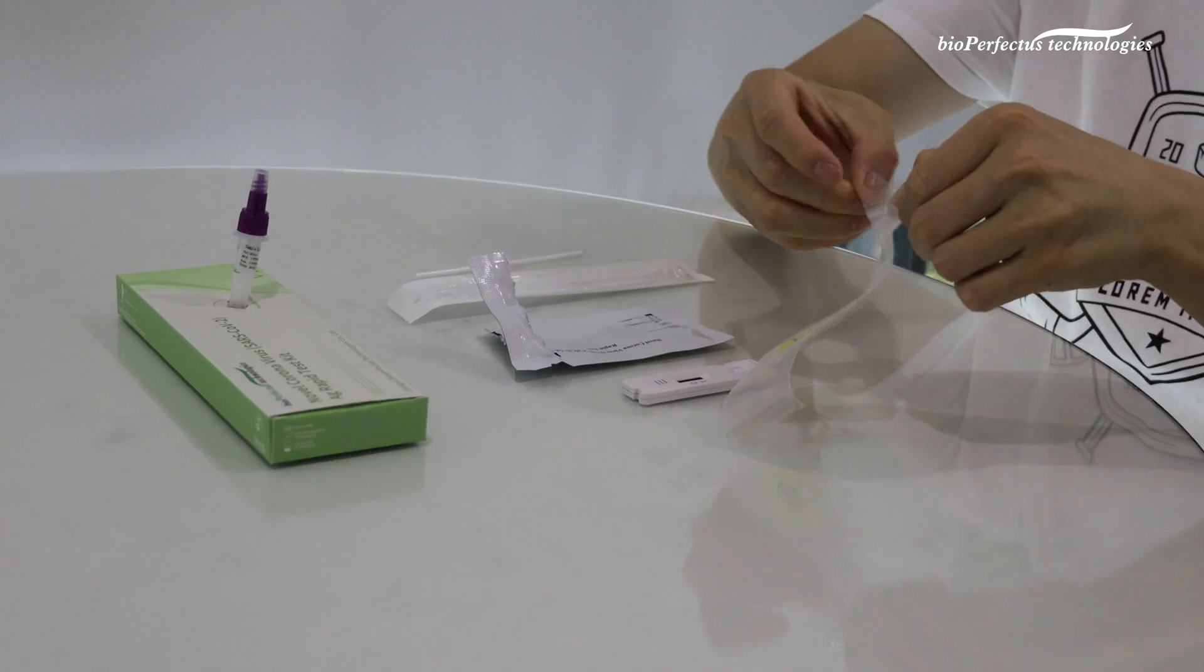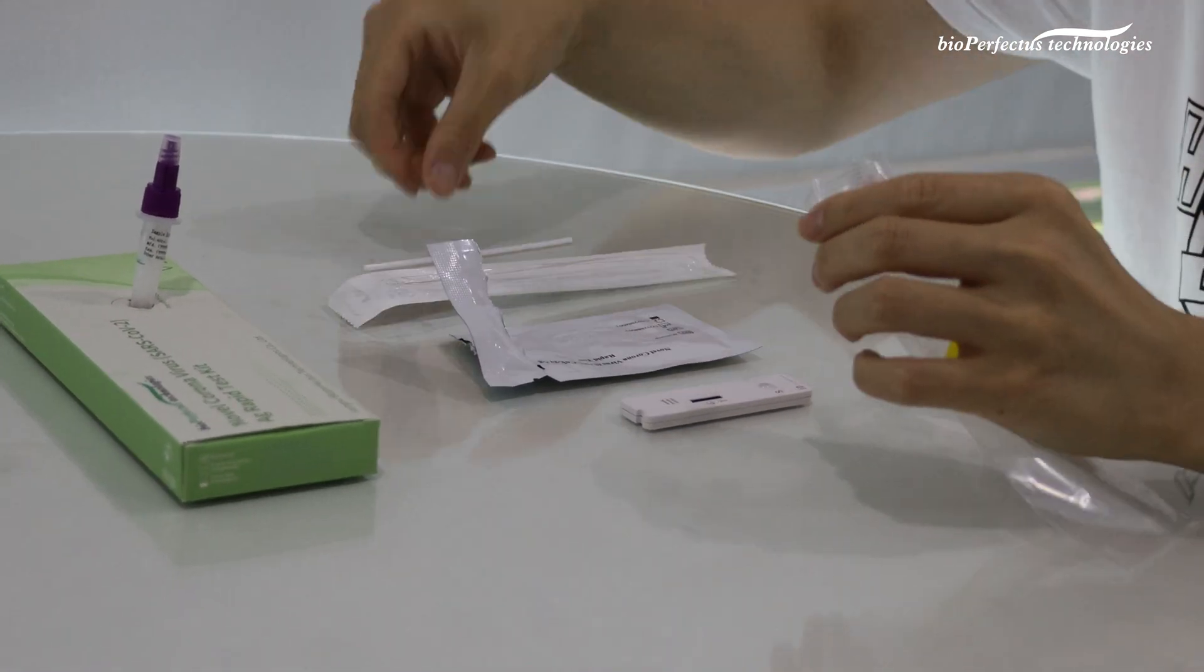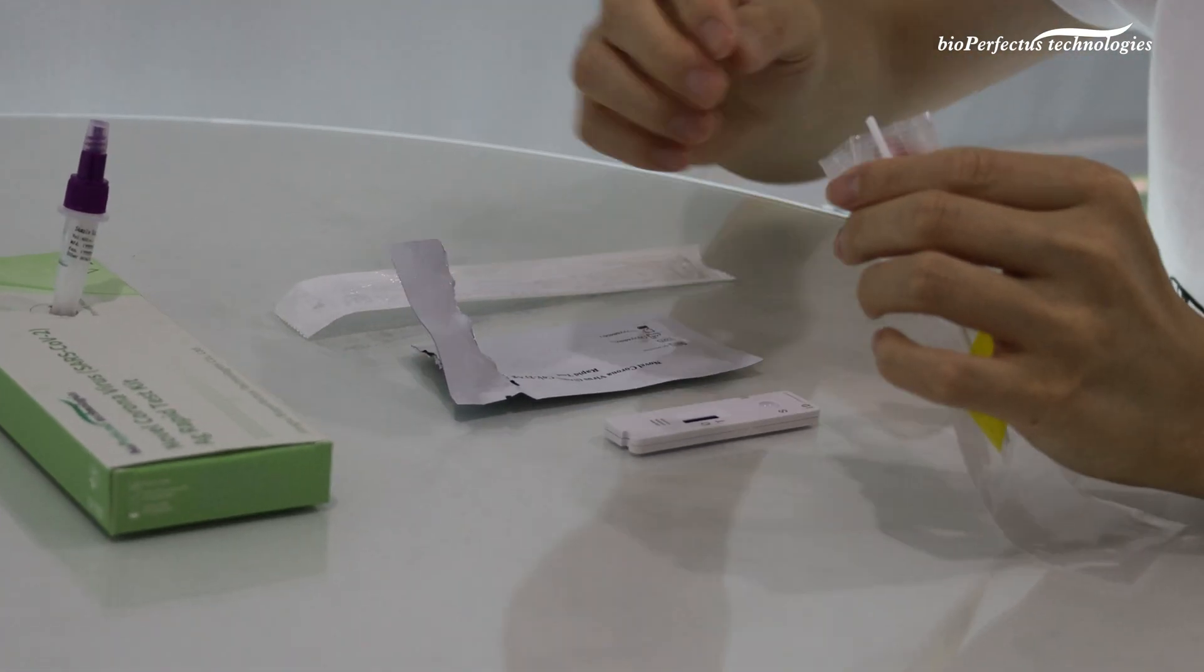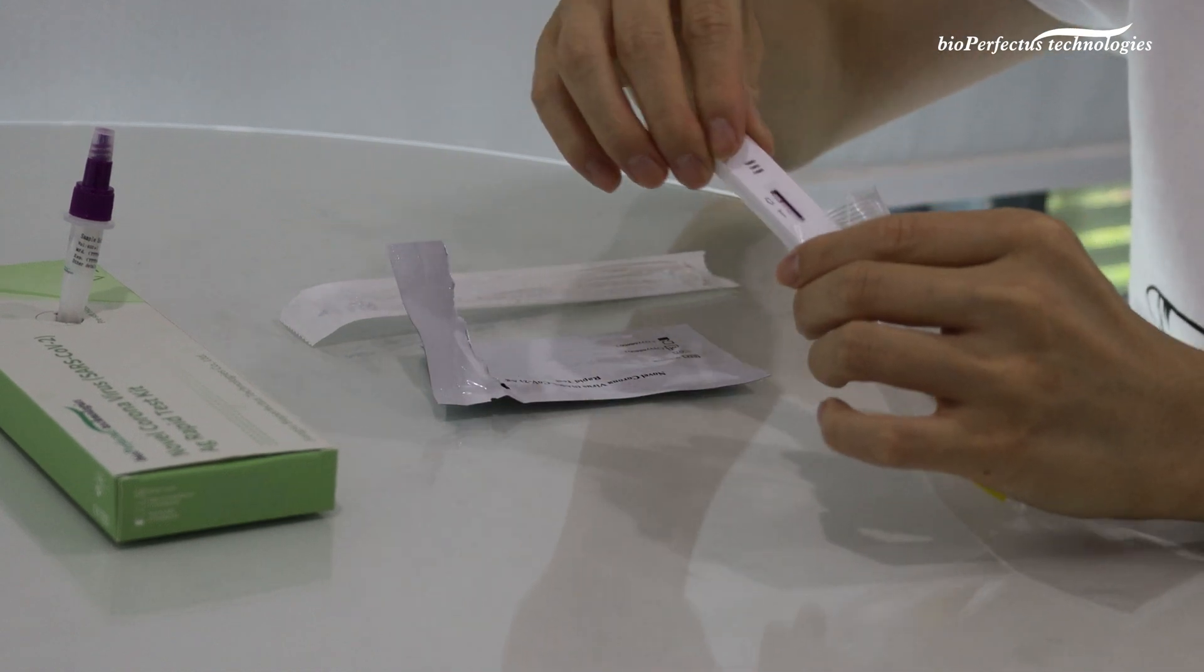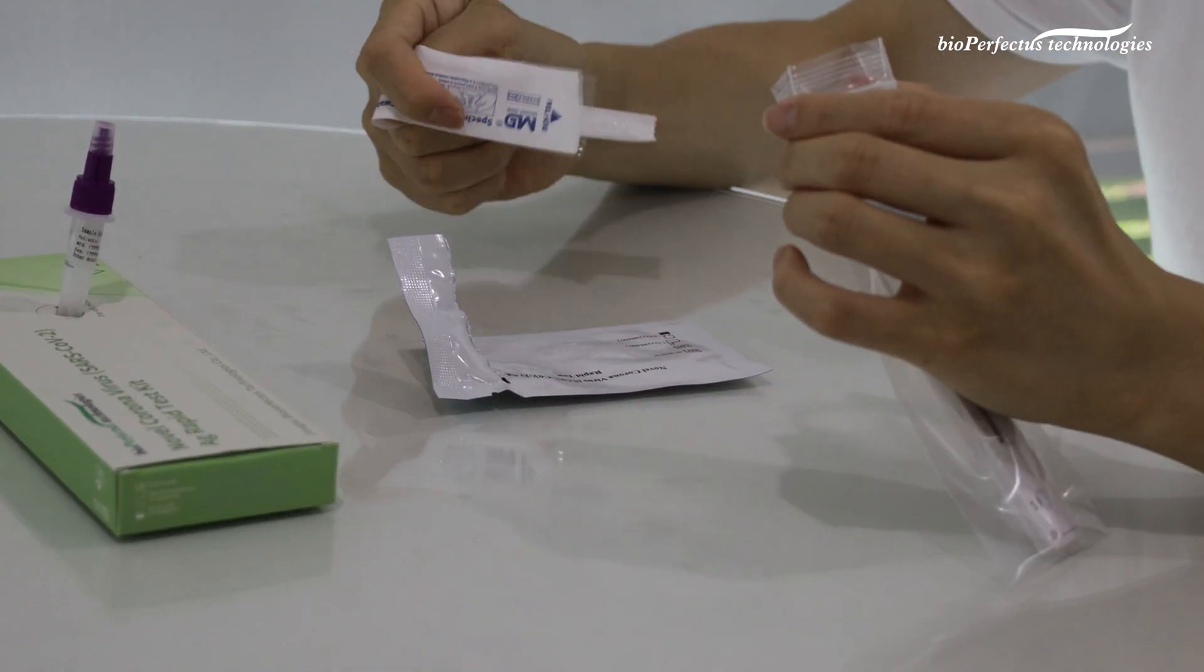After finishing all the steps of the test, place the test pieces in the biohazard bag and dispose all test materials in trash.